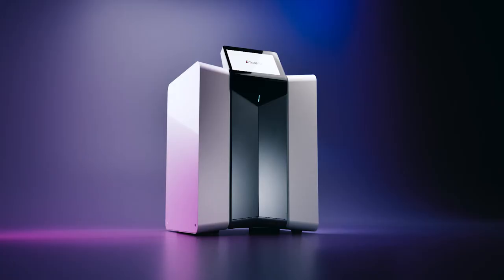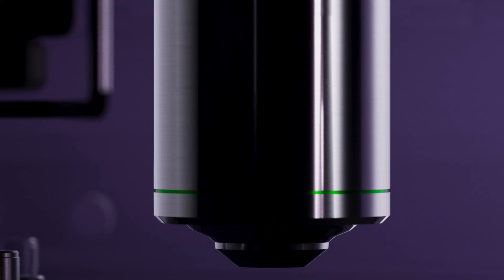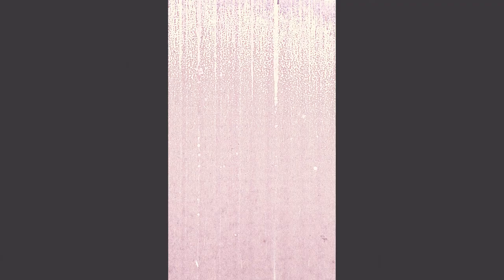Scopio is revolutionizing cell morphology with its state-of-the-art technology to image cells at 100x resolution without sacrificing the field of view. The result is full-field digital imaging of thousands of cells.